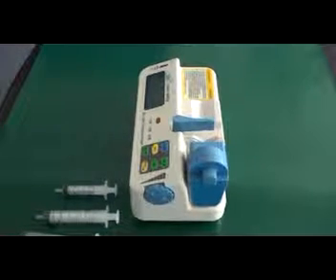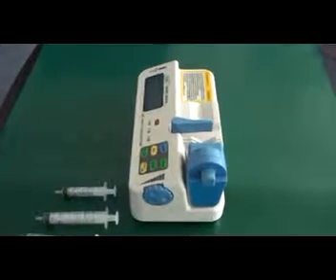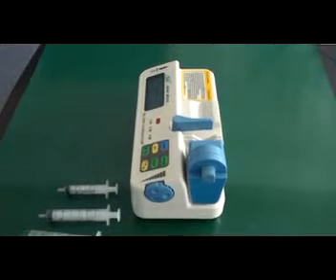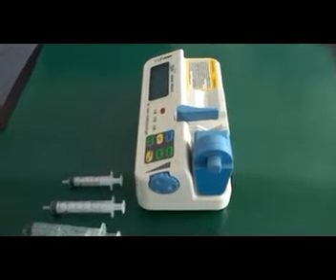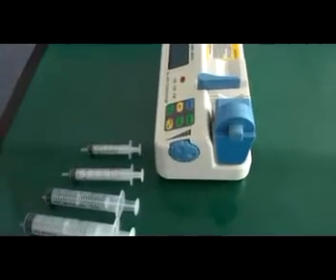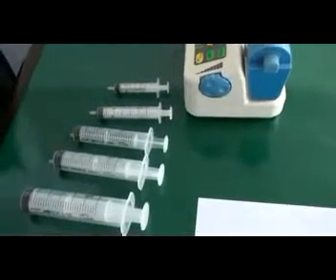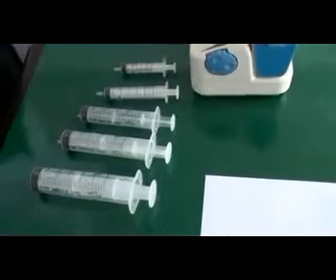Thank you for using the SK502 syringe pump. We test our syringe pump with BD syringes. If you want to use another brand of syringes, you need to reset the syringe parameters in order to guarantee a precise and accurate infusion.